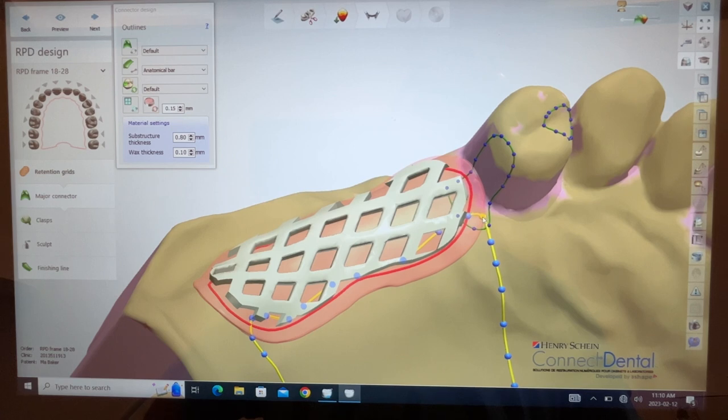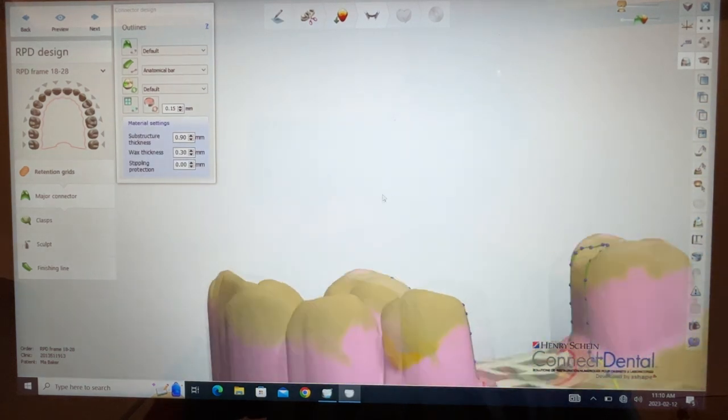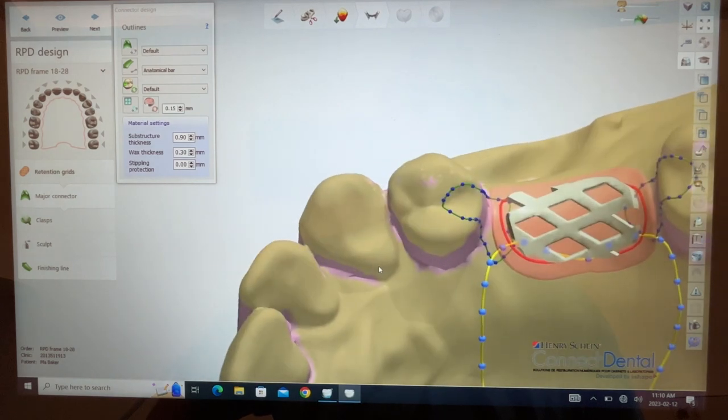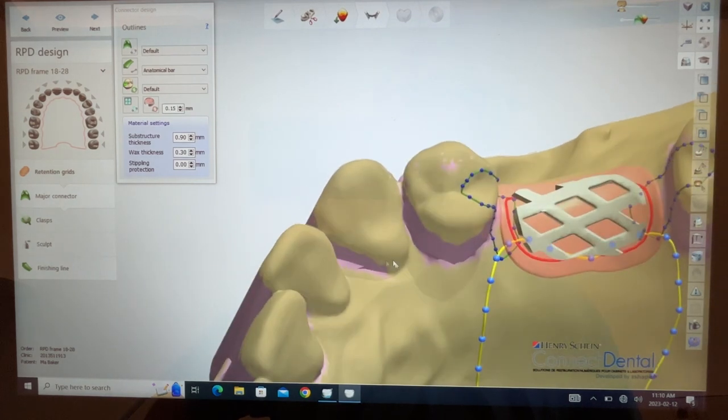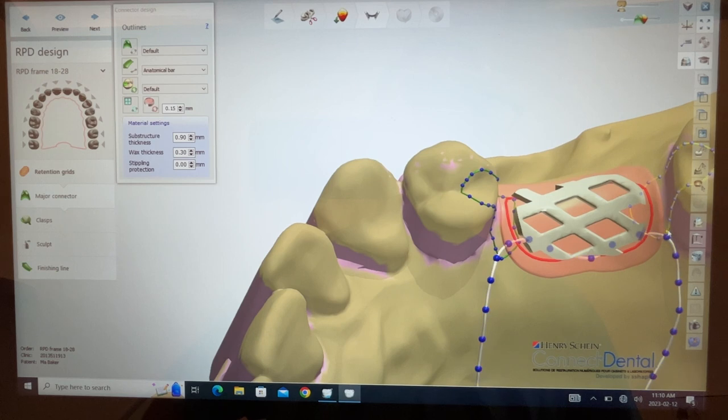And then I'll see what it looks like when it's all connected and then maybe go back. How about over here? Maybe this looks a little bit suspect as well. A smoother transition.